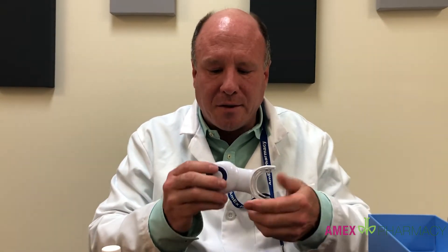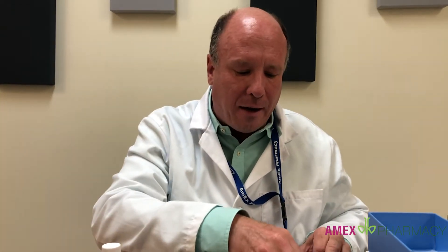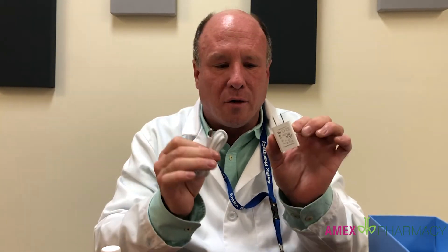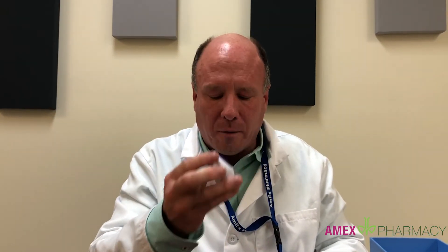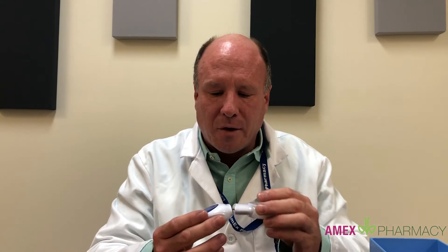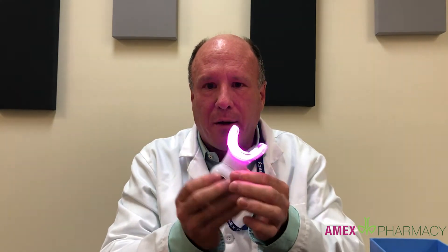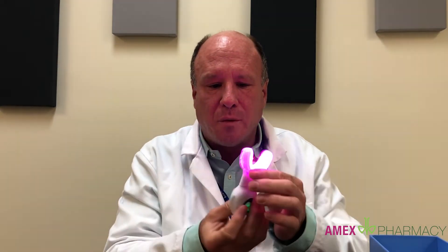It's comprised of two pieces. A battery pack, and the battery pack comes with a charger so it's much like a cell phone. It has a little cell phone type charger cable that charges the power supply, and then this is the mouthpiece assembly. You assemble these two — very easy, presses on there easily. It's very lightweight, and then you turn it on and this shows you what it does.